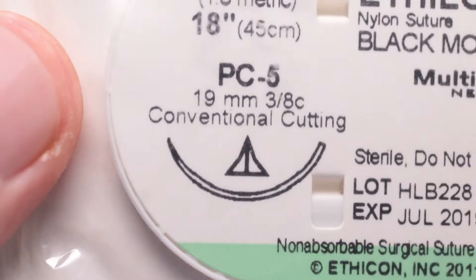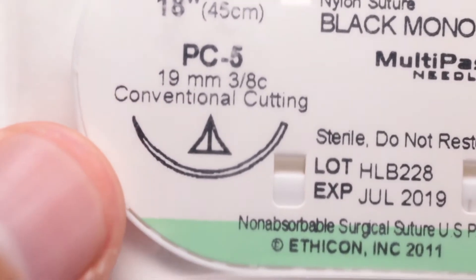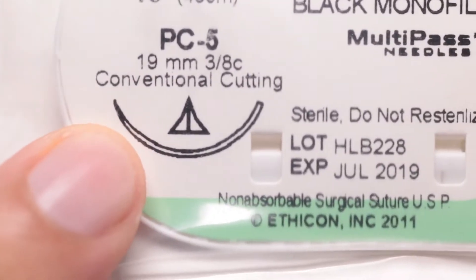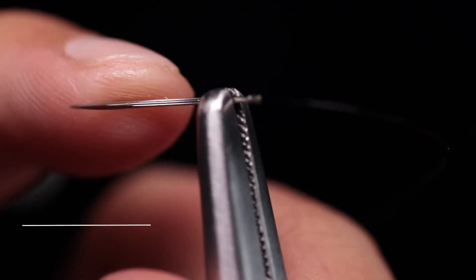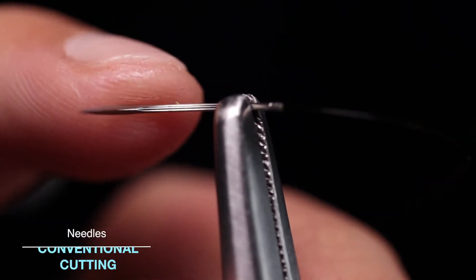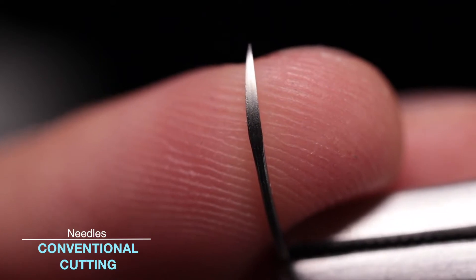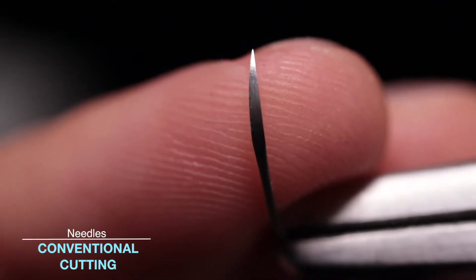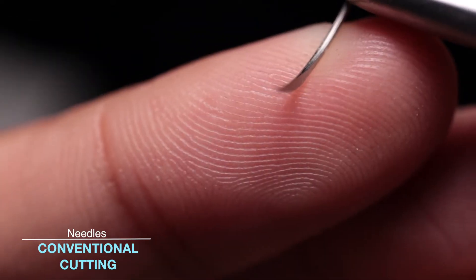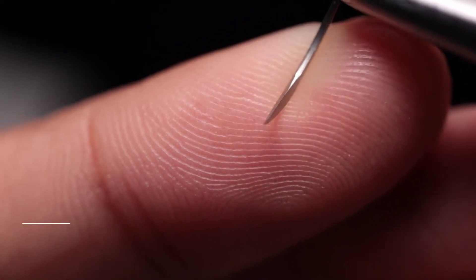Conventional cutting needles are represented on the package with a triangle with the tip facing upwards. This indicates that the cutting edge is inside of the curve of the needle. As you can see, the conventional cutting needle's outside is very flat and the inside has that little edge that helps go through tissues more easily.